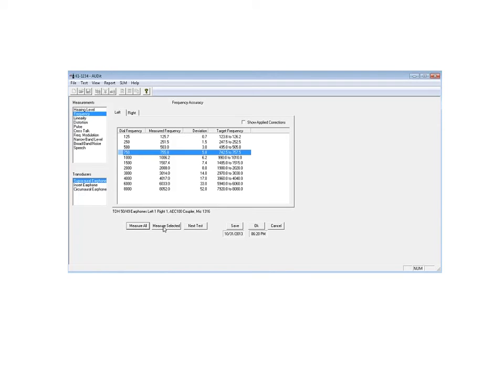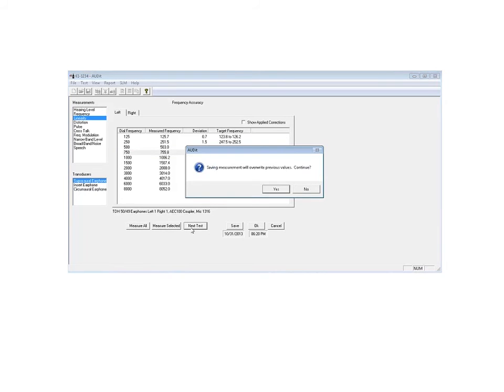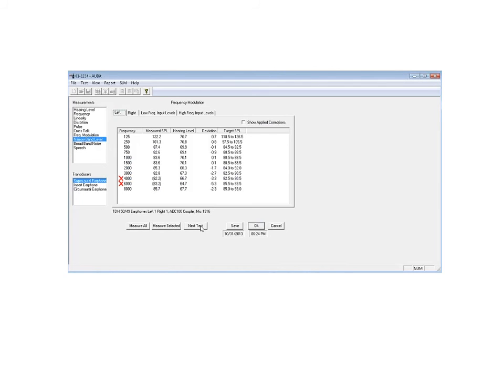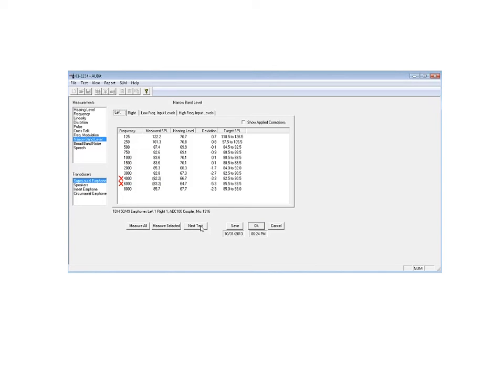But as you'll note here, we'll go on to the next test. The test is becoming quite an extensive test. In the next test, they call it narrowband noise. If you take your FM radio and put it off station, you can hear somewhat of a white noise. The definition of white noise is equal energy per hertz. And we can also get a narrowband noise, which goes up in frequency as we change our frequency meter.